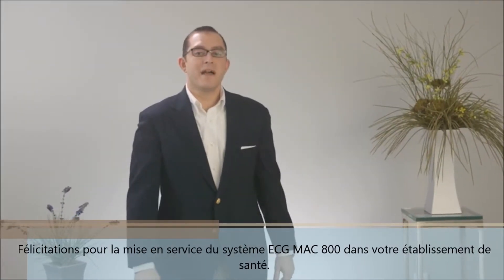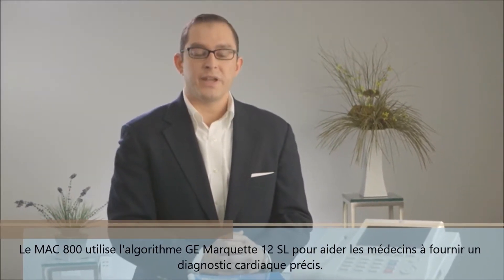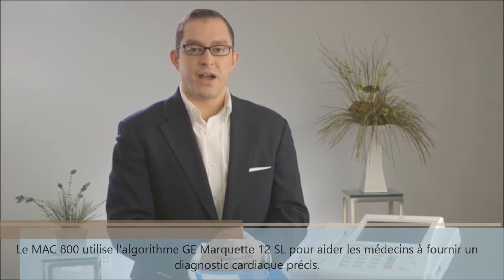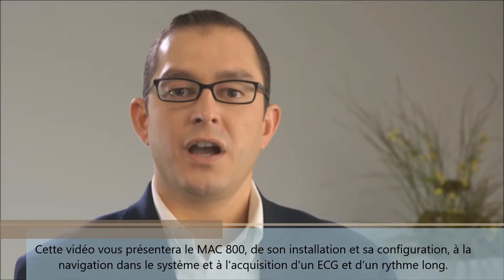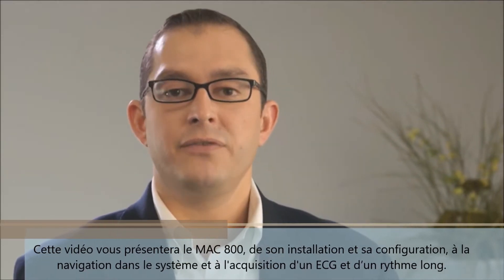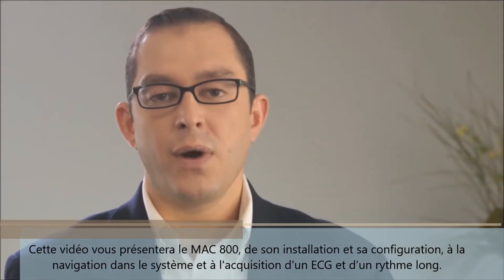Congratulations on implementing the MAC 800 EKG system into your healthcare facility. The MAC 800 utilizes the GE Marquette 12SL algorithm to help physicians provide accurate cardiac diagnoses. This video will provide you with an introduction to the GE MAC 800 covering setup and configuration, system navigation, and acquiring an EKG and rhythm strip.